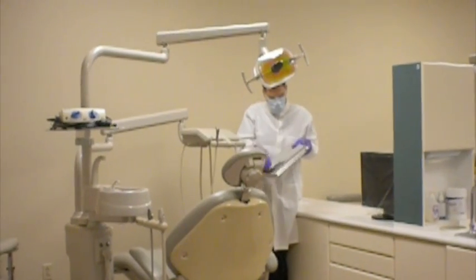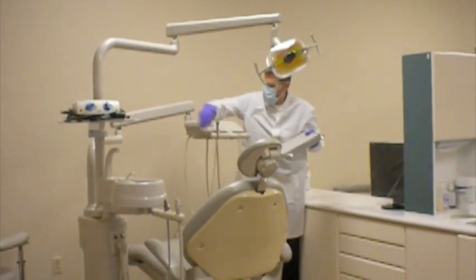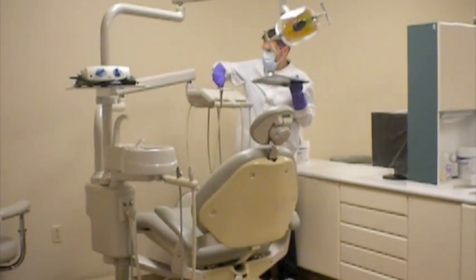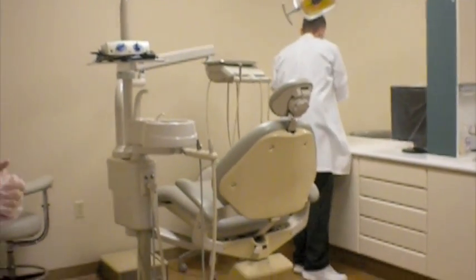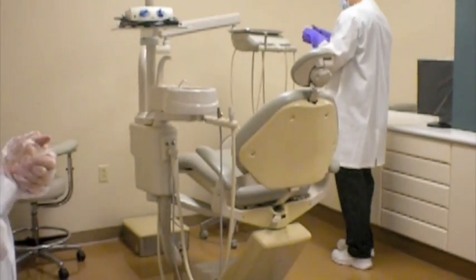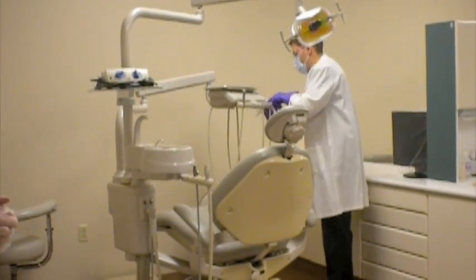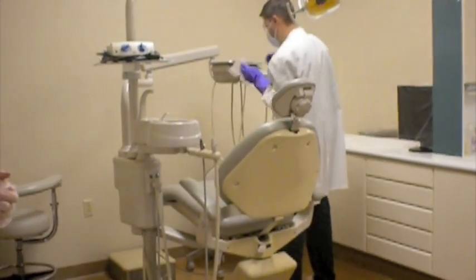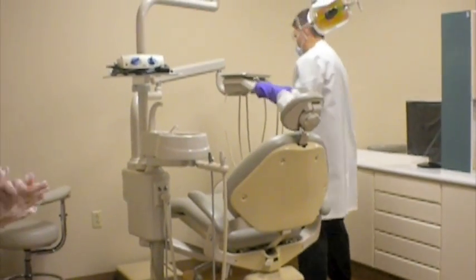And prior to placing it back on the unit, he'll wipe the top of the bracket tray in one direction away from him. Replace the skid pad, replace the tray, and then he can do the sides of the bracket tray, and then he'll come around to do the front of the bracket tray and the hoses. So we'll do the sides, including any handles there or buttons. And then he'll come around and do the front of the tray, including the bracket arm and any of the items that are in the front.